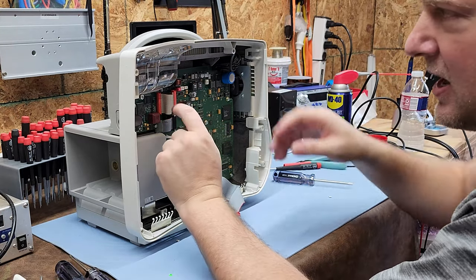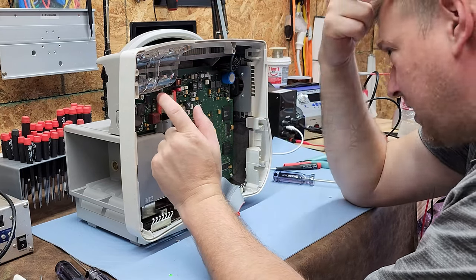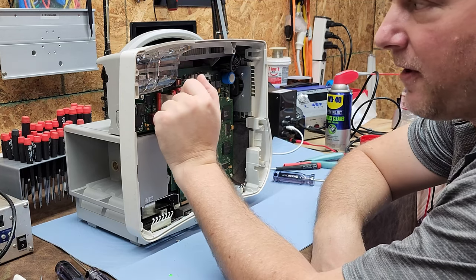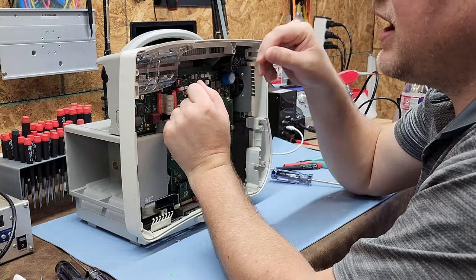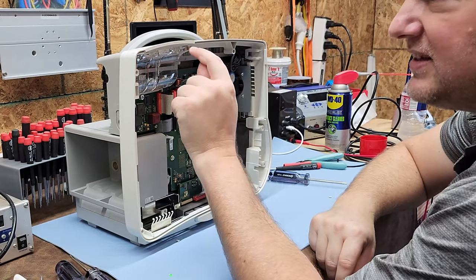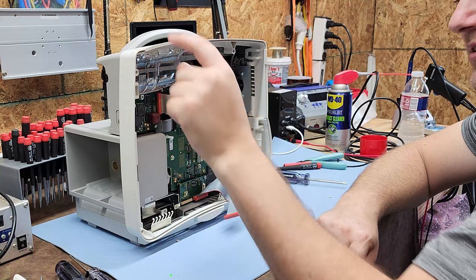This would probably come as a field replaceable unit — an FRU — which is probably how I'd want to replace it. Now look at this: when you see the light indicators here, the red is critical, the blue is usually network. These are essentially light guides — shaped like Lexan acrylic — that carry light from the LEDs down on the PCB up to the front of the monitor.